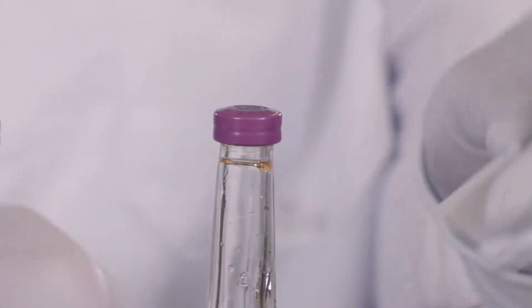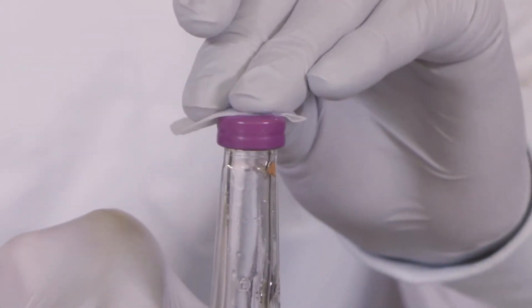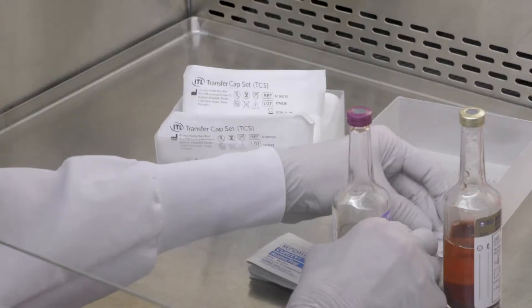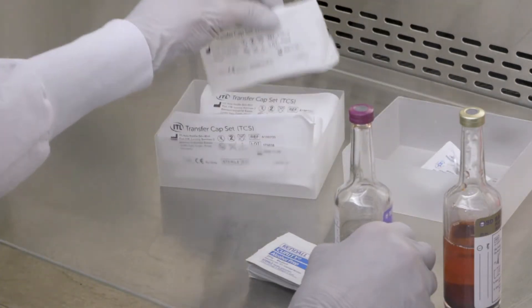Next, disinfect the bottle septum as per your facility procedure. Now you are ready to begin the sample transfer procedure.